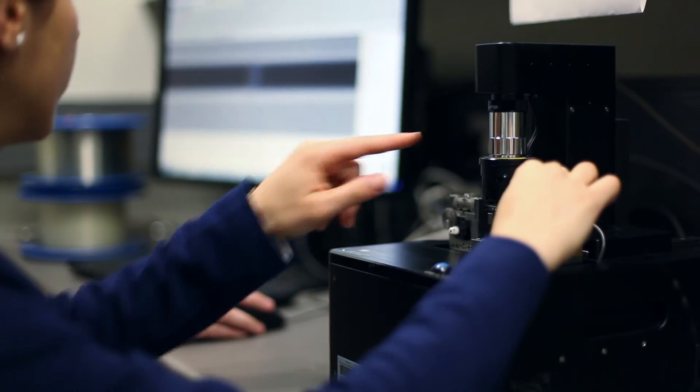One in four patients at the moment have to come back for a second procedure. We think that's actually something we can significantly improve with a microscope in a needle.